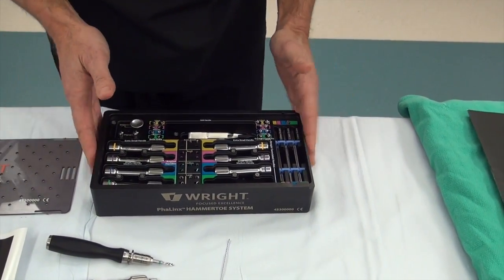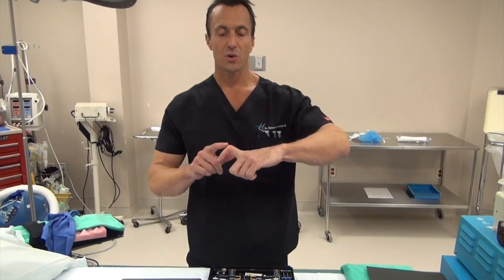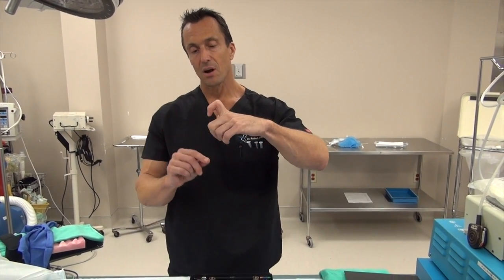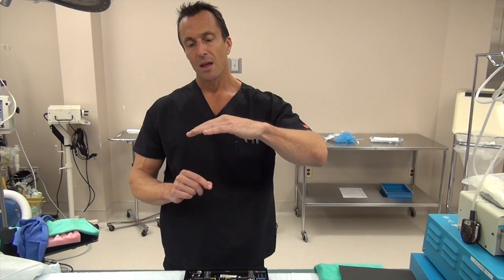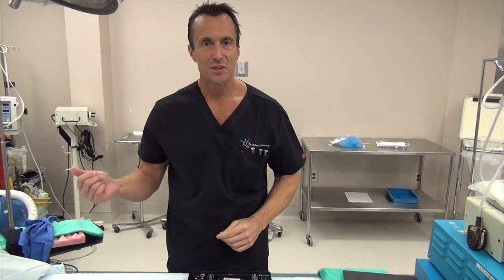And there you have it — a neat little set for fusing the interphalangeal joint on either a cock-up hammer toe, mallet toe, which is down at this area here, or a claw toe. And then of course, if you need a straightening or shortening procedure, let's go see the surgery.